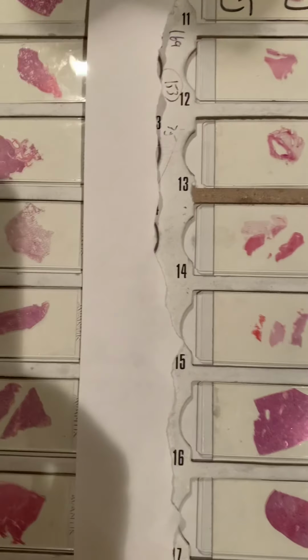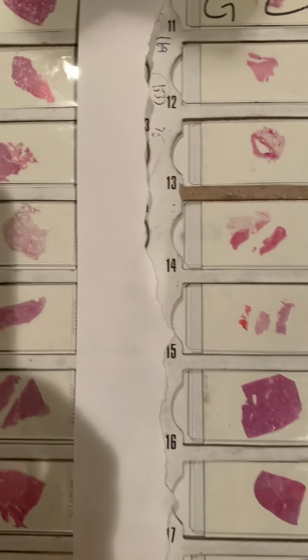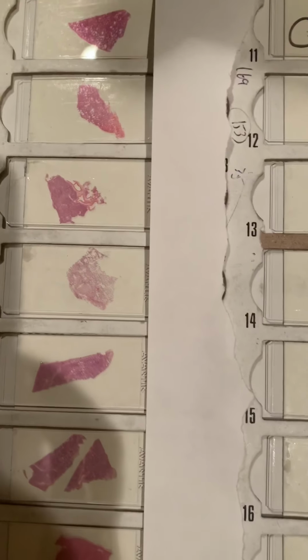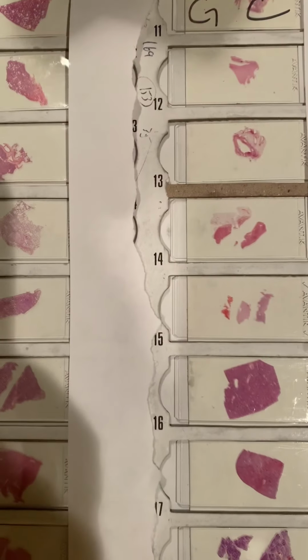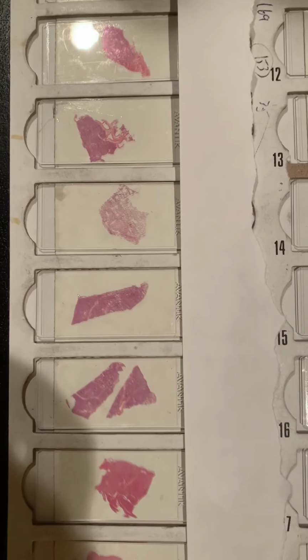And the kidney sections are on the other slides, but I just wanted to give you the gross of the sections of tissue that I will be showing you. Okay, and then we're going to begin to do the histology.